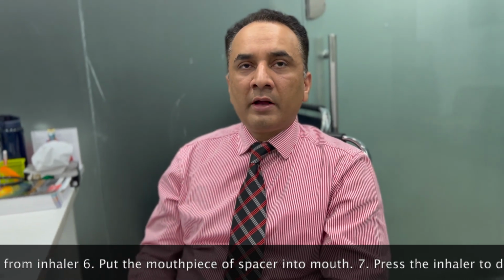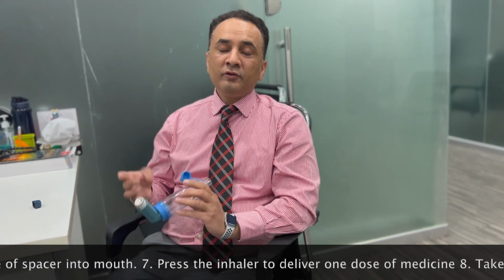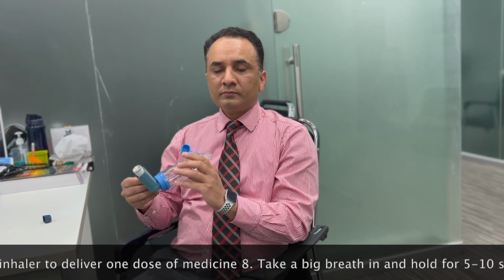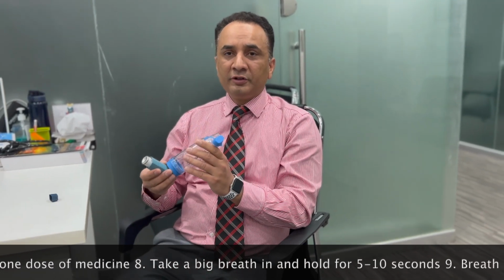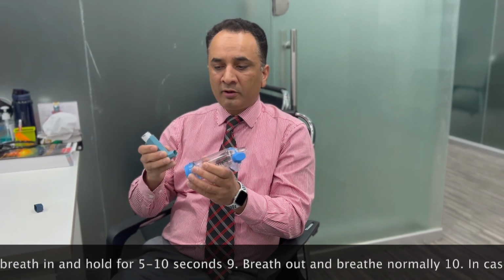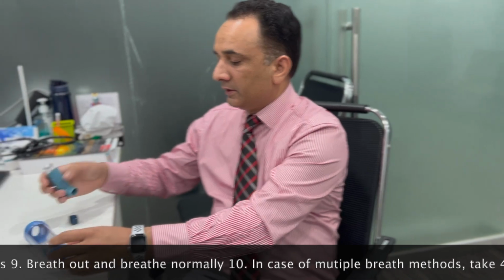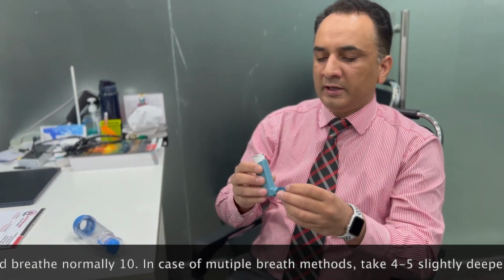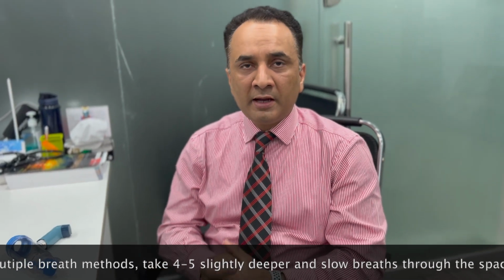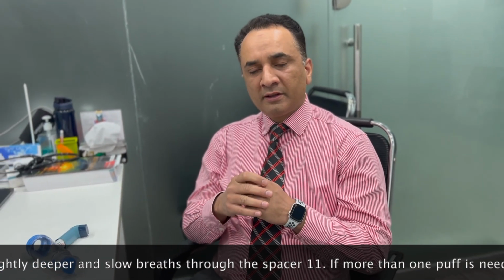And that's how I have taken 4 deep breaths in and out for one spray. If you need to use more than one spray, you can repeat the steps again. Once you have finished using the puffer, dismantle your MDI or inhaler from the spacer. You can cap the spacer and put the cap at the end of your inhaler too. If there are a lot of secretions, you can use a tissue to wipe the end of the spacer. You need to periodically clean your spacer at least every 2 weeks.